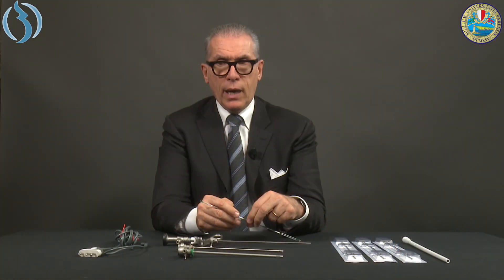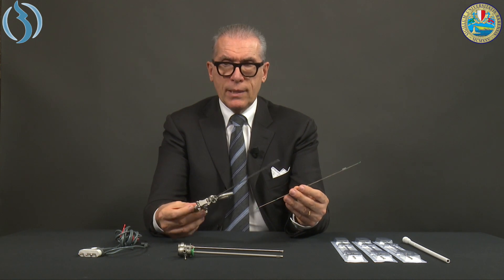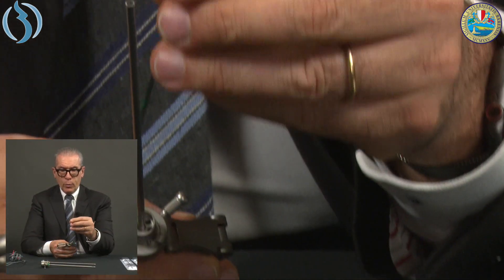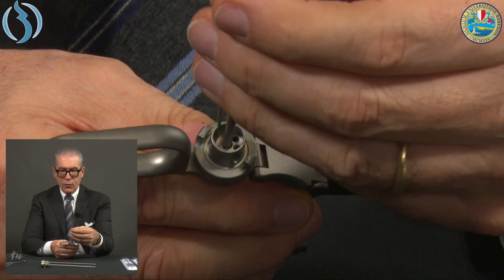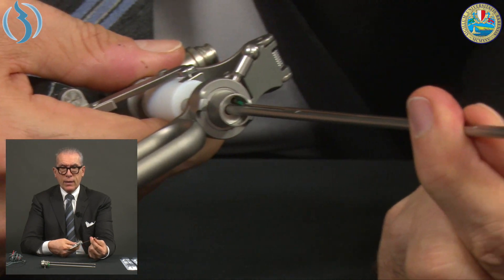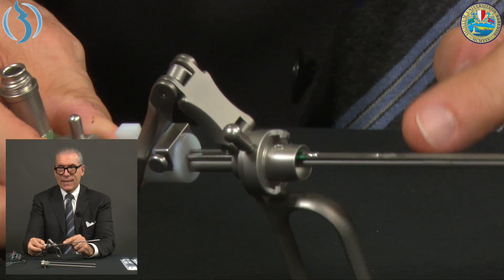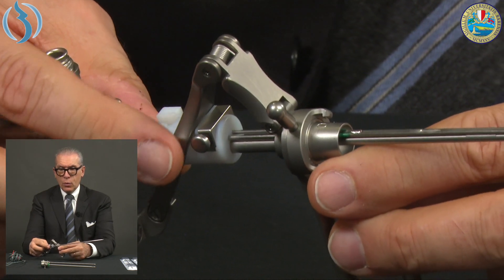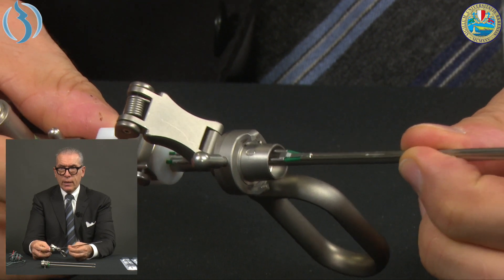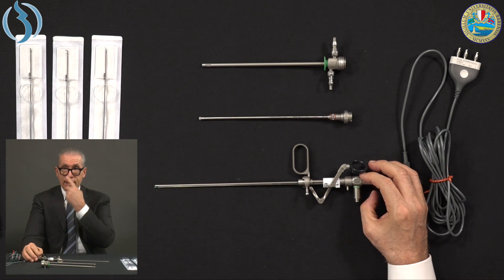The two arms of the electrode are the positive and negative electrodes respectively. Insertion is similar to the classic resectoscope — there are two holes. I prefer to insert the electrode into the holes first, click it in, and only once it is seated do I push and fix it onto the lens. To release the electrode, push the same button as on the classic resectoscope.